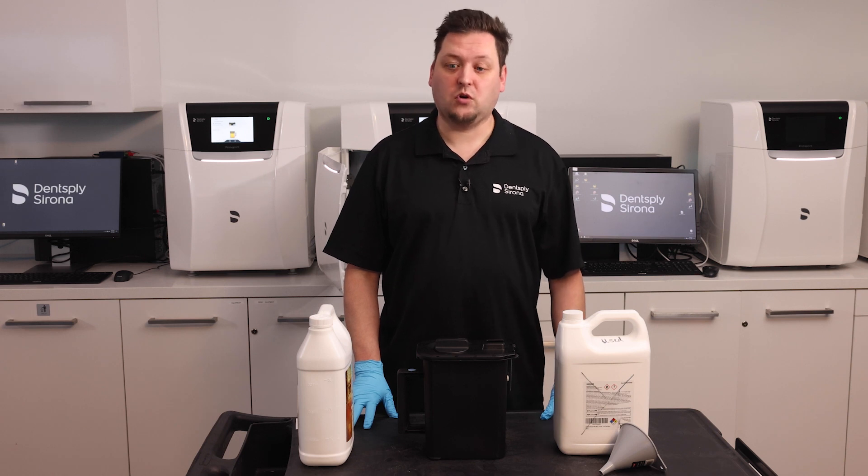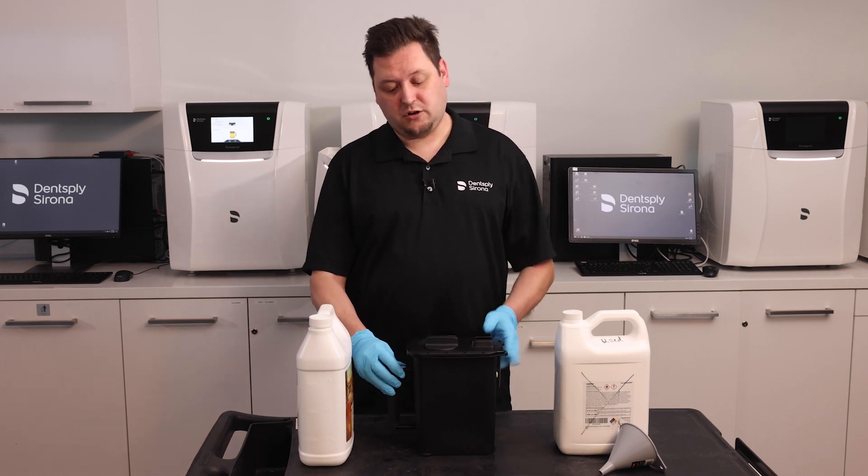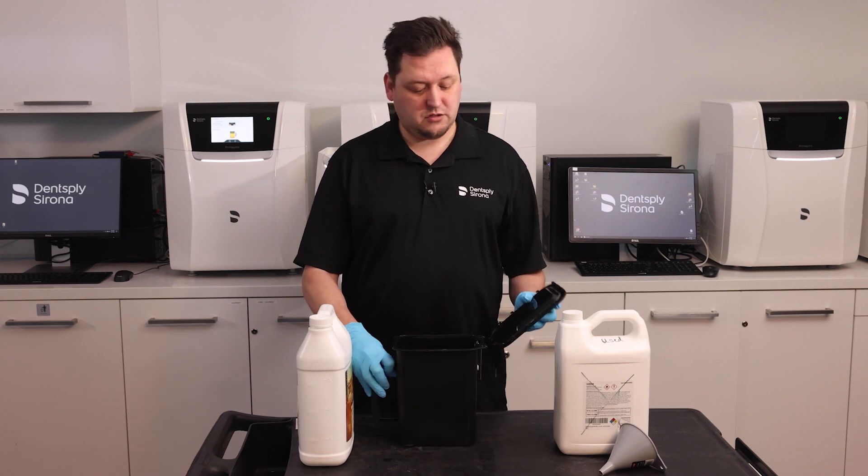This replacement process is called refurbishing. So how do we do it? First, I'm going to take off the lid just to make it easier to pour.